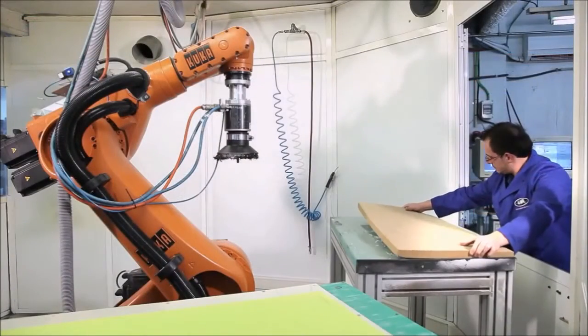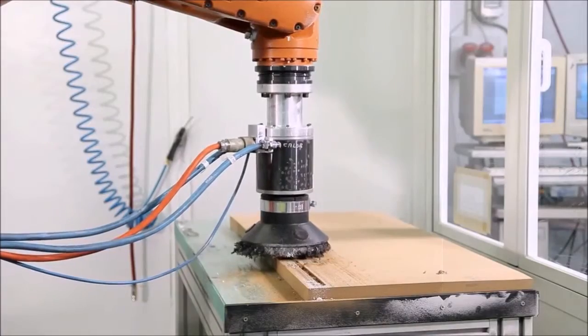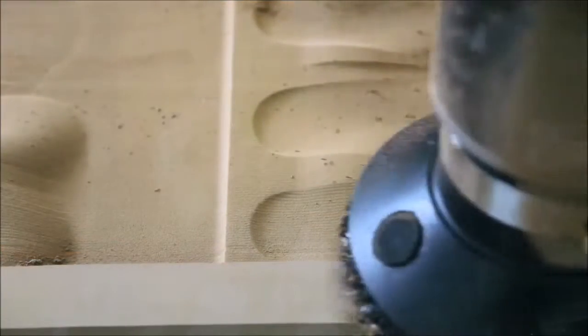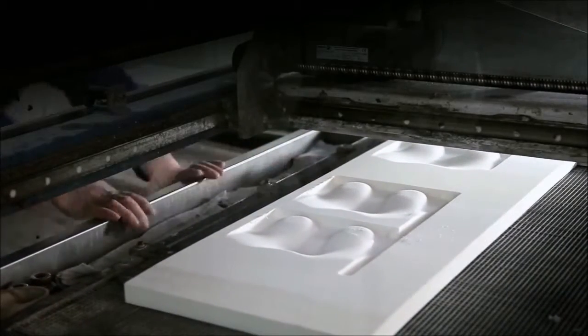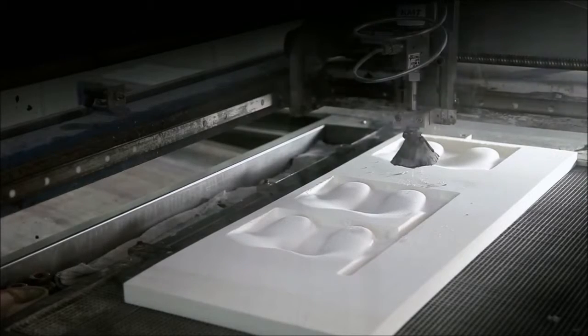All EV orthotics are directly manufactured following the CAD process with our high-precision robotic equipment. For thermo-adapted materials, we collect a physical reproduction of your foot shape using high-precision machinery and orthotics specialized ovens.